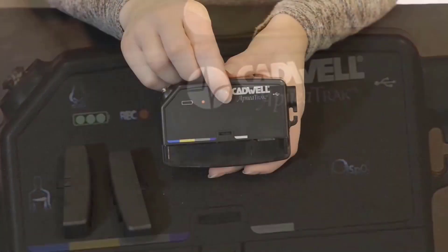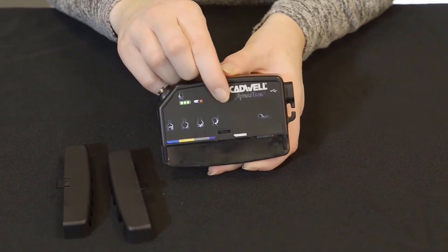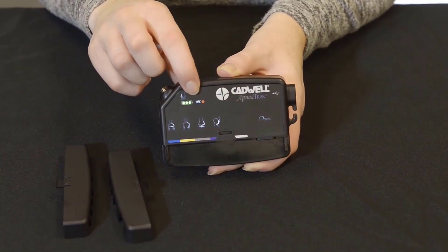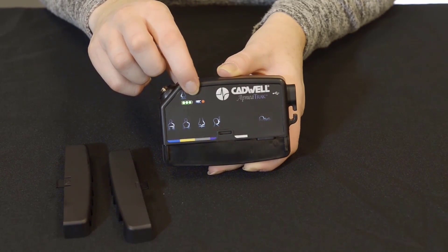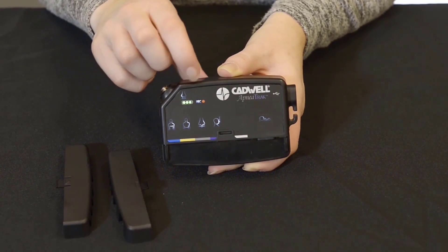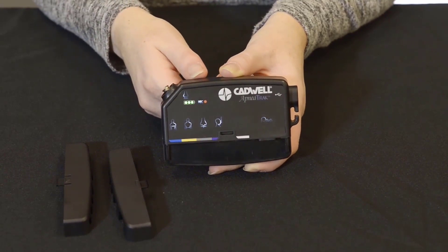After the recording has started, this indicator will illuminate solidly if the button is pressed. During the recording, this will also place a patient event in the study visible during review of the record.